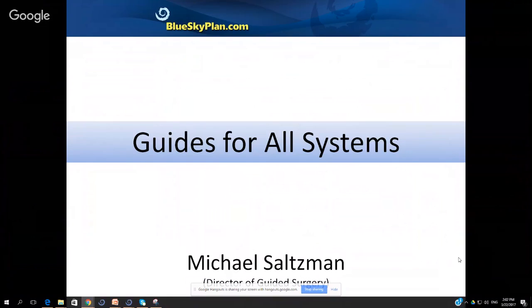This is going to be a bit of a more advanced presentation. Some of it's going to be on the simple side, some on the more advanced side. We're not going to be discussing the basic functionality in the software — we're not going to be discussing how to treatment plan or load DICOMs. I'm assuming that people watching this already have a pretty decent handle on the software, and we're going to be discussing some new functionality that's coming out.